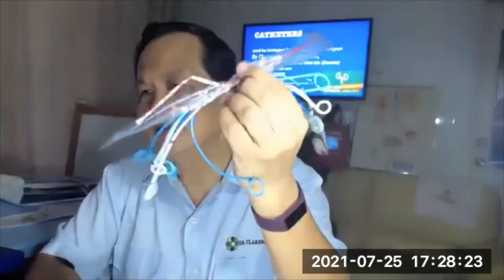There are many kinds of ureteric stents. Sometimes they come as a complete set with the guide wire and introducer. They have different sizes, different colors, different materials. You can estimate the size — usually maybe 24 cm. They come with multi-length options so you can leave some in the bladder. If you leave too much in the bladder, it causes a lot of irritation — what I call stent disease. Different stents come with different-sized pushers — make sure they align with each other.